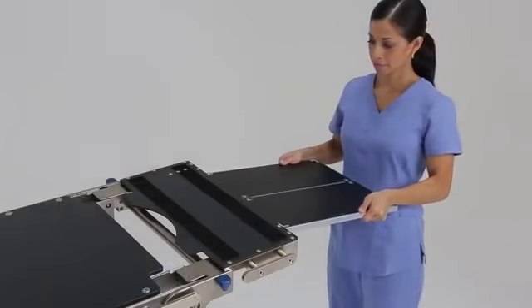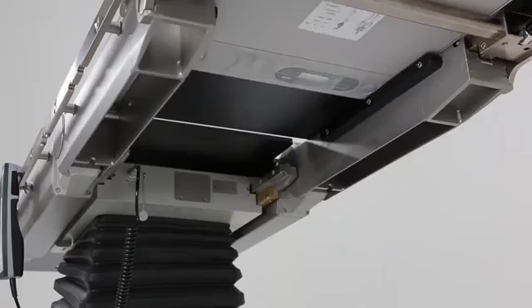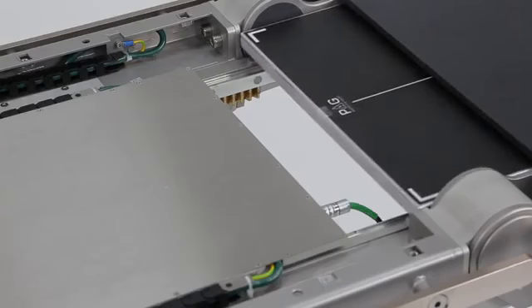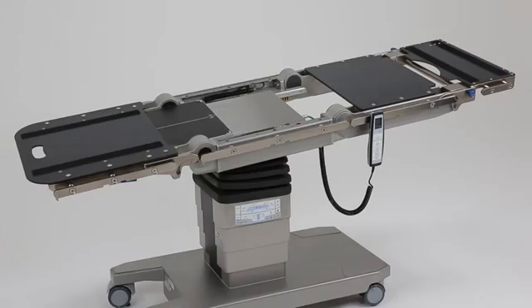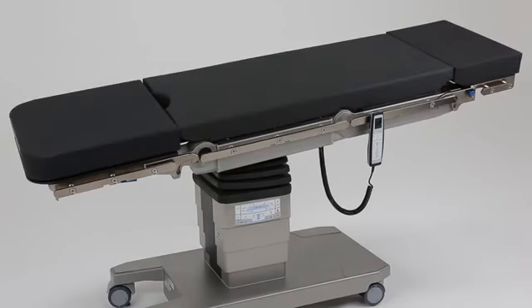With the advent of state-of-the-art table systems from Trumpf, X-ray tops have been replaced with an under-table rail system allowing a lower operating height, lighter components and less maintenance. This rail system utilizes an innovative interior track for supporting a traditional X-ray cassette.